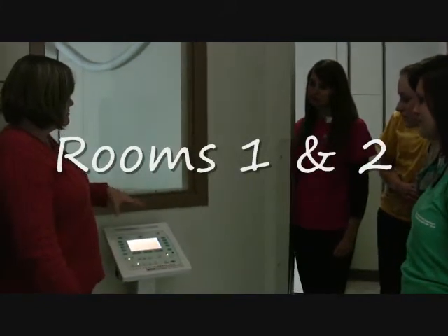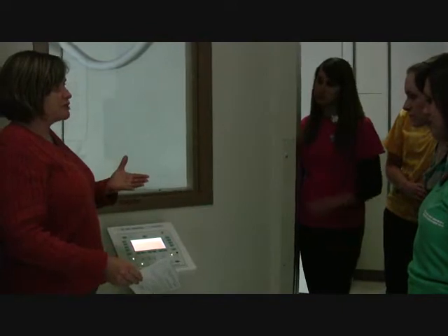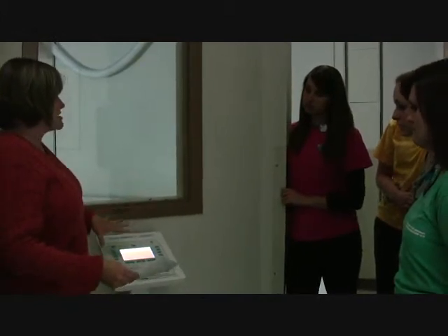I just want to go over a little bit of the control panel with you guys. One thing that you always want to do is get your request and figure out what it is that you're going to do, and then before you get your patient, you really need to make sure this stuff is all taken care of.